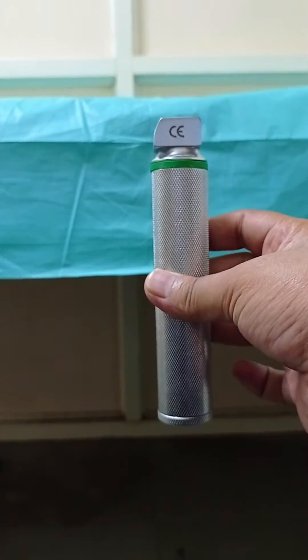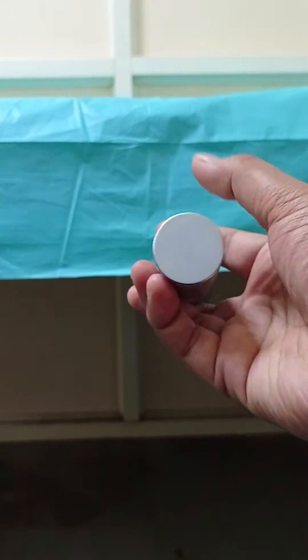This is a handle of a laryngoscope. It is the base of the handle from where we insert batteries.